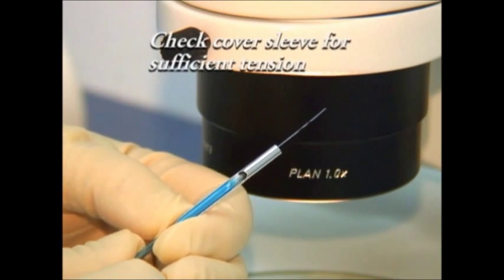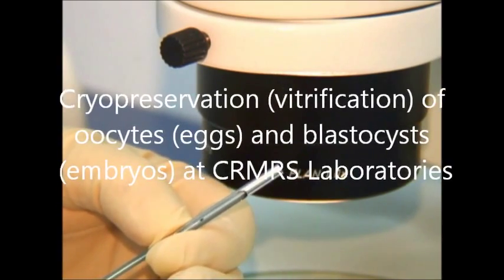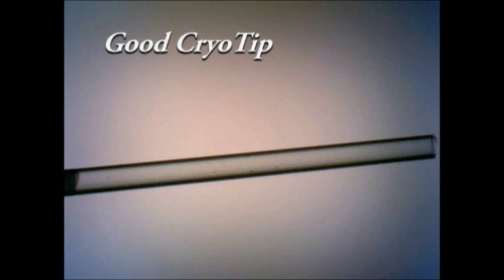This new technology enables the embryologist to successfully freeze and thaw eggs, embryos, and also ovarian tissue with 80% survival rate.